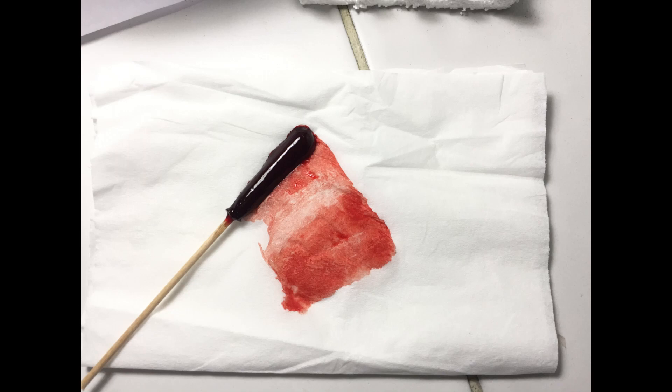Record the results as to the degree of retraction and the quality of the clot observed, whether the clot is stable or unstable.